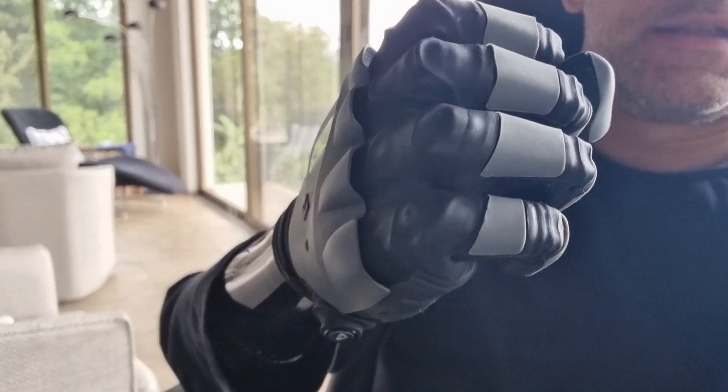Hello there! Time for an update. I'm getting several questions about what's going on with my arm — do I even have it, is it working? So I got my arm this thing last March, got set up, trained on it in Canada for a couple weeks, came back to Panama, used it a couple of times and it broke significantly.